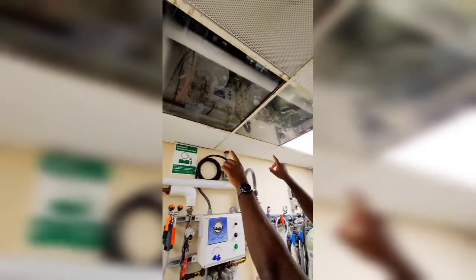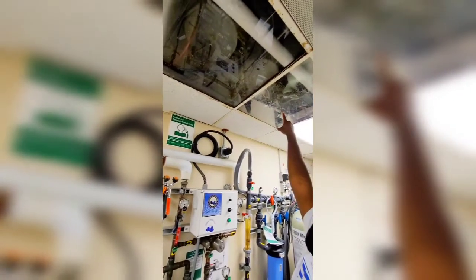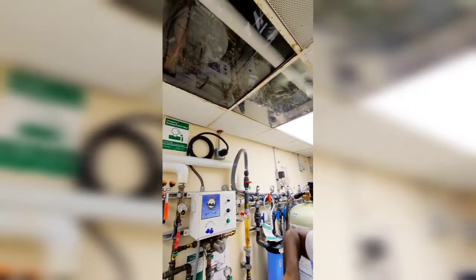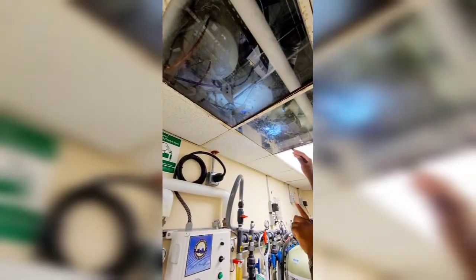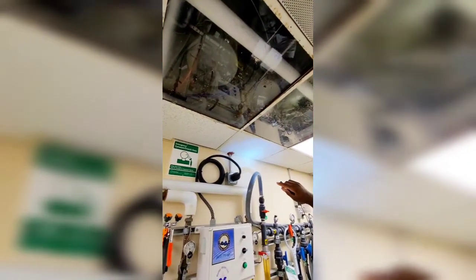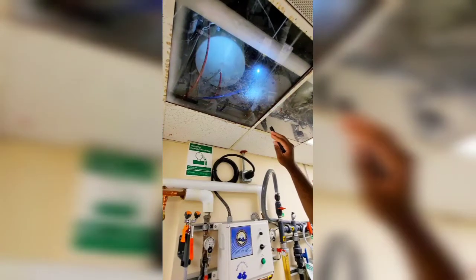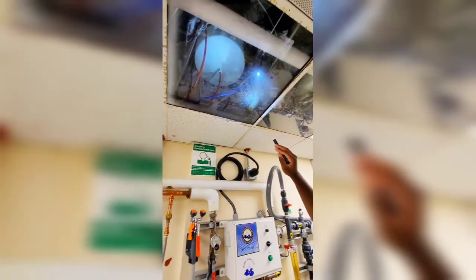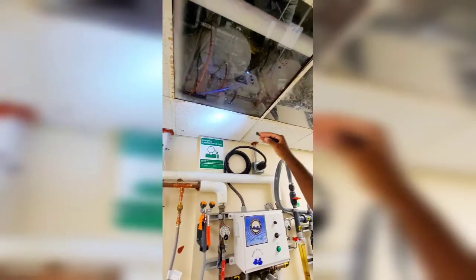What are these pipes for — why can you see through here? So these are your head tanks for the acid and bicarb. When we had the bicarb mixture here, the SDS would send bicarb into that tank on the right — that tank would fill up and the blue hose at the bottom would go to the floor and hook up to the wall boxes out there. But we don't use that anymore — the bicarb tank is gone. The acid one is still here.